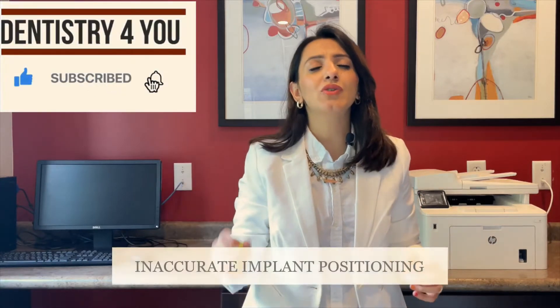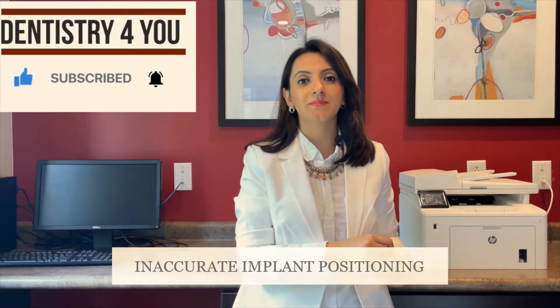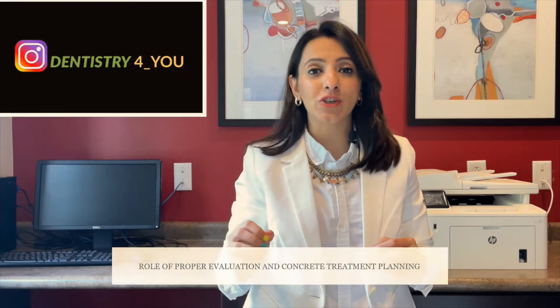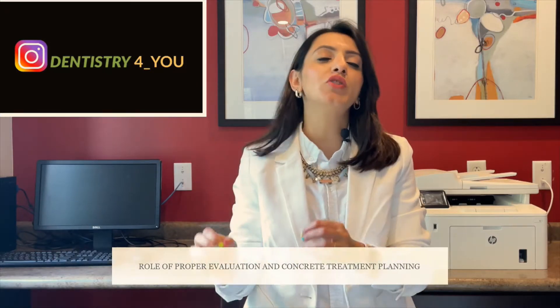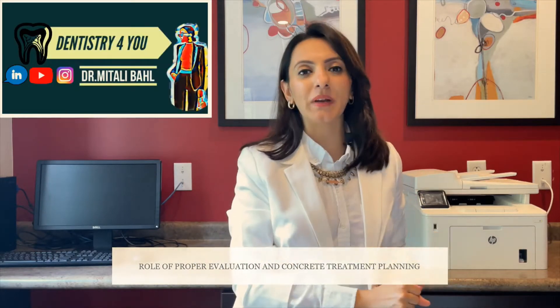Research shows that many of these complications are associated with inaccurate implant positioning. That is where the role of proper evaluation and concrete treatment planning comes into play.